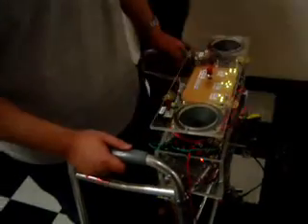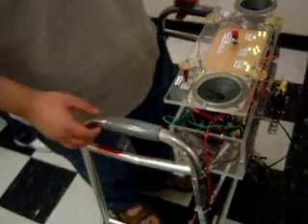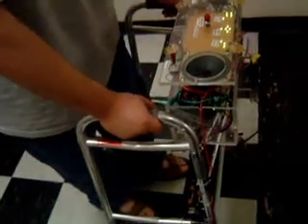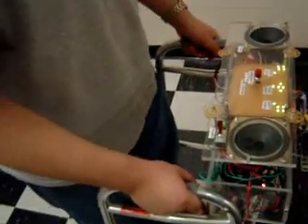Therefore, I can let the machine know whether I want it to move or not. If I try to push it now, it's locked. So I want to go forward — I'm going to put my finger over the photoresistor to release the brakes and go forward.